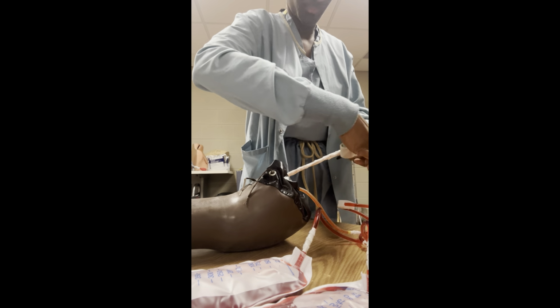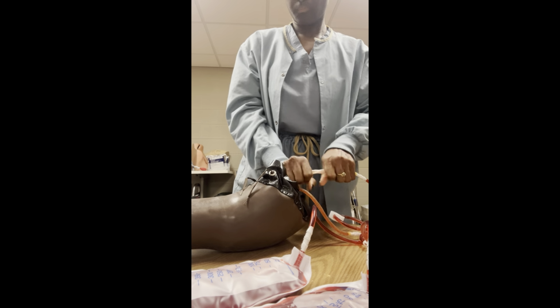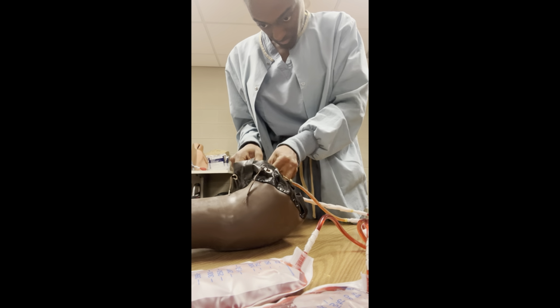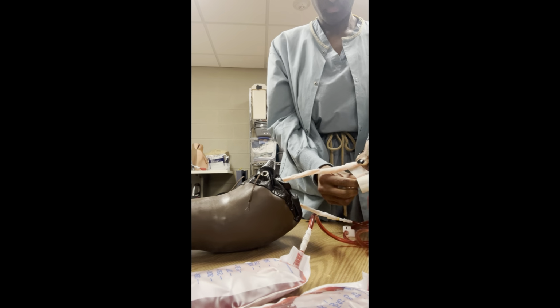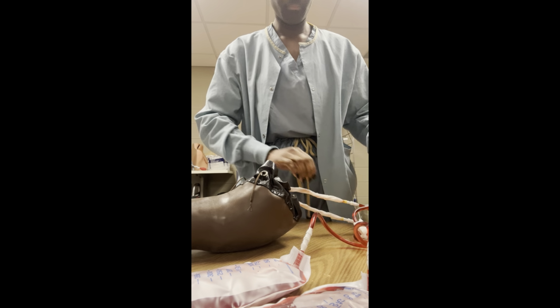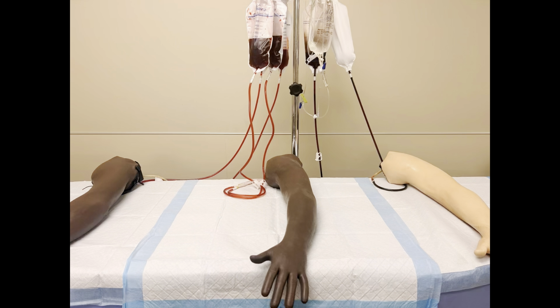So to preserve the arm for a little bit longer, we tape them off, trying to prevent the tubing from twisting or from getting holes poked into them over time, because they will start to leak, as some of our older arms started to do. So here I'm just taping them off. Give you a little close-up of what the taping looks like, and here's what all three of our arms look like at our IV station.